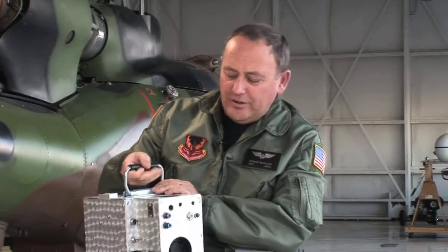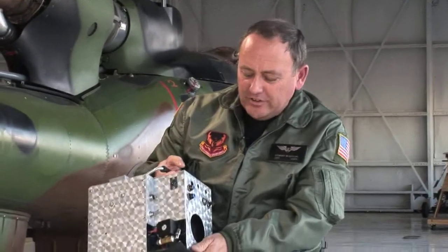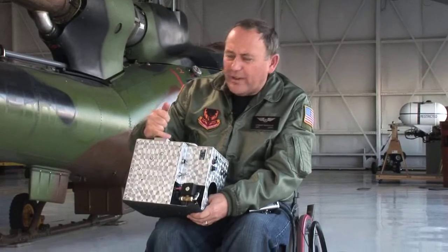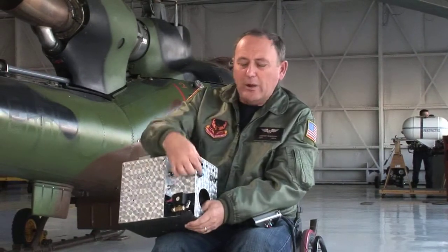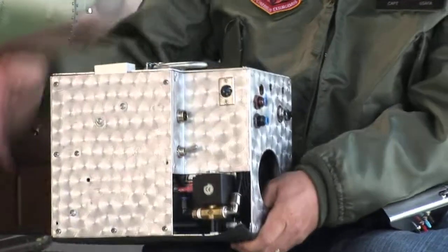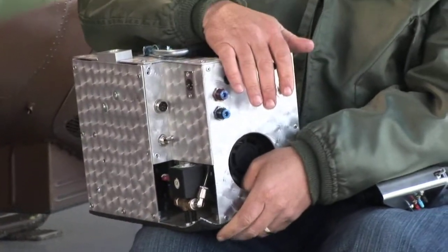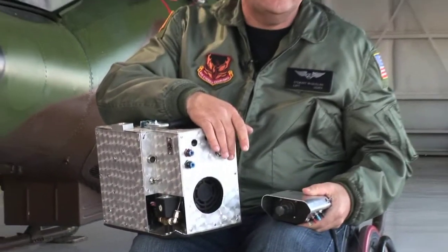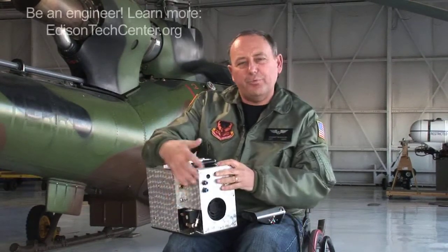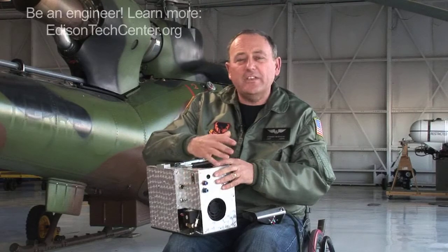This is the third part — we call this the heart. It's a very robust little unit. Inside it has a rocking diaphragm pump. It has a proportional valve up here, which is controlled by this unit. All we're doing is controlling the rate of flow to the two output lines that feed the pneumatic rams. We also have a solenoid so that we can dump the pressure. If I'm flying with a student or another pilot and I want to transfer control, a simple flick of a switch will activate the solenoid valve and release the pressure from my system so that they can now fly the aircraft.